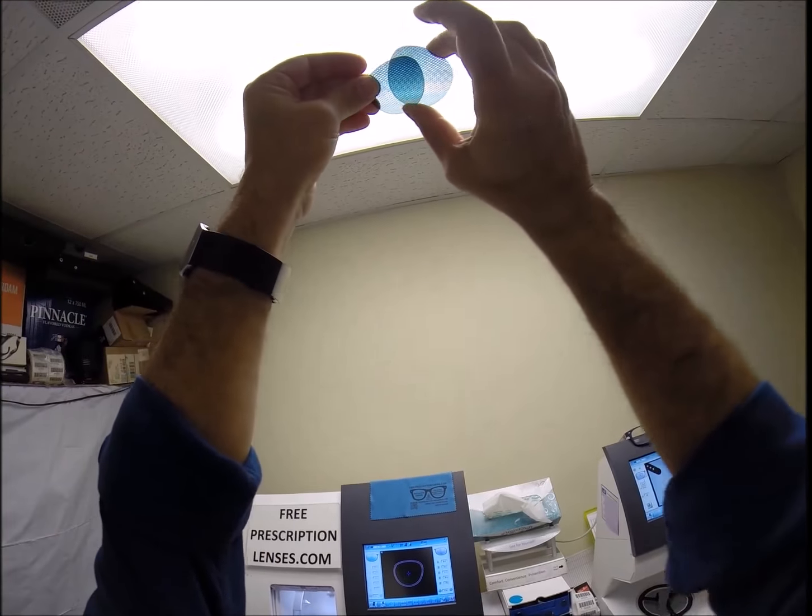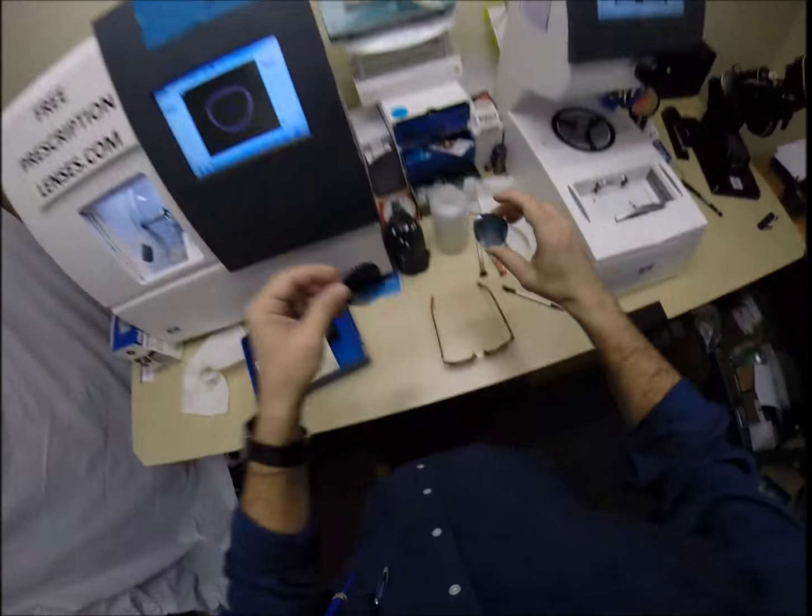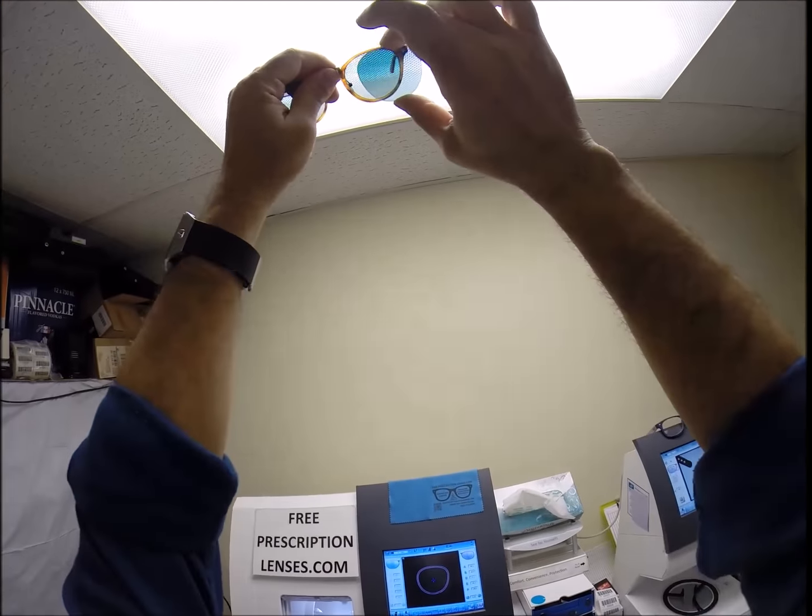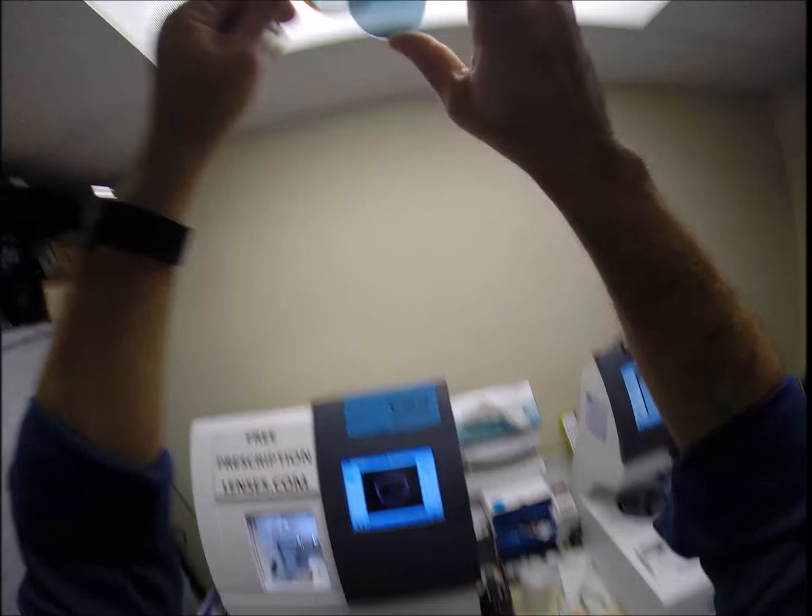Let's do the test. Yes, they are. So, double check it against what you have. Polarized. How about that?